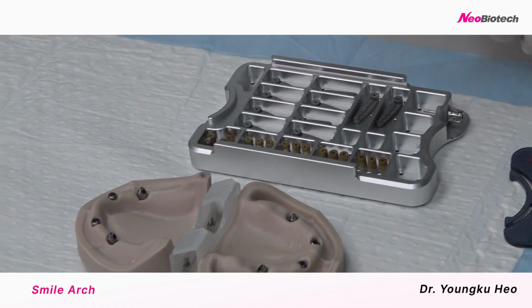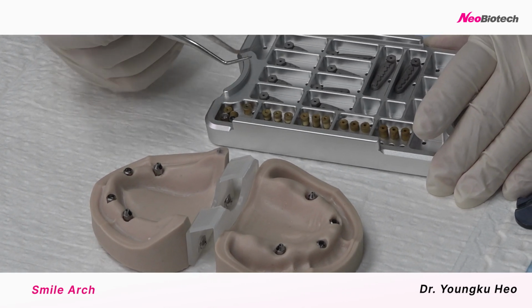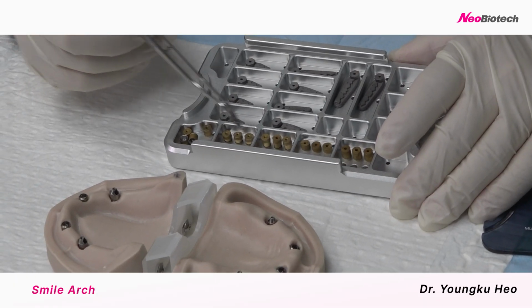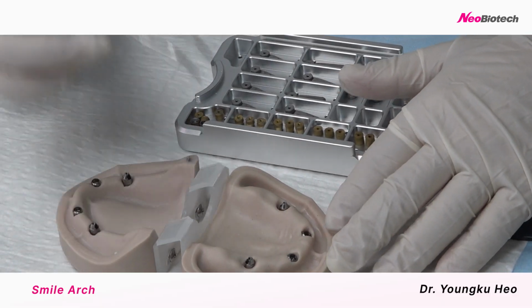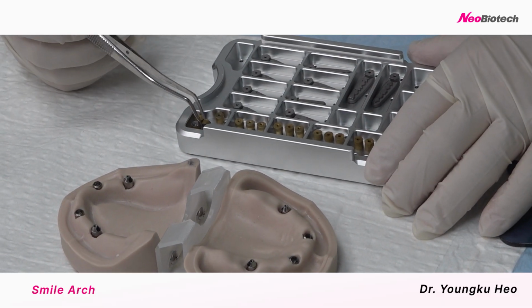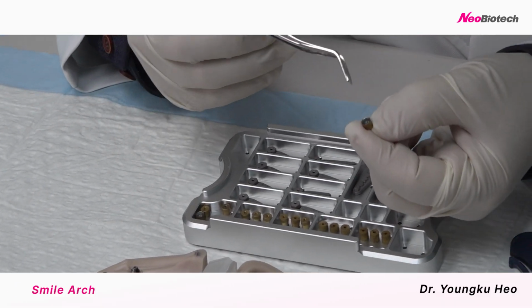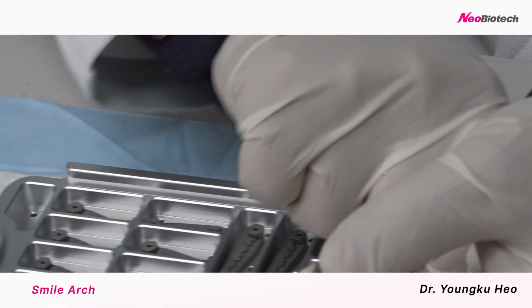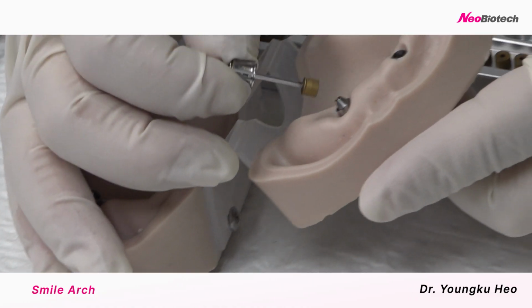I'll show how to use the SmileArch scan body. So there is the scan post on top of the MUA. So this is the MUA, the scan post. You can put this here.